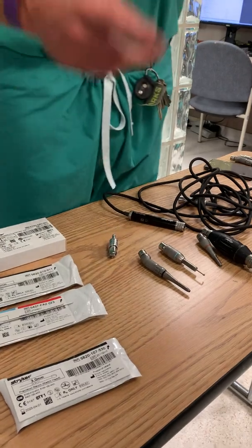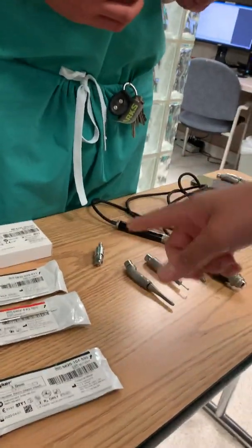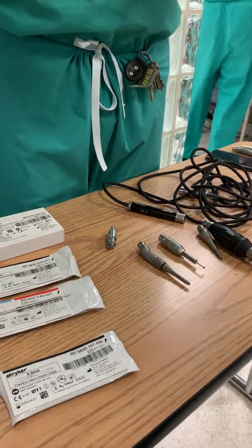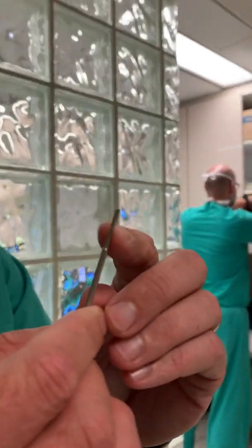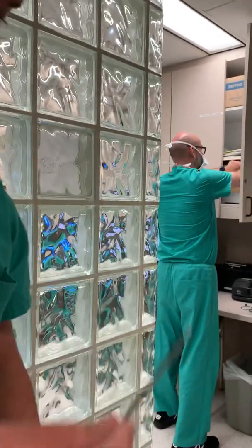Things to remember: you're probably not going to see these packages, but when you have them — look at this. See these rivets right here? Just an easy way to remember on the field: if you have these rivets, or you see these lines, this can go into any attachment that has a black ring on it.